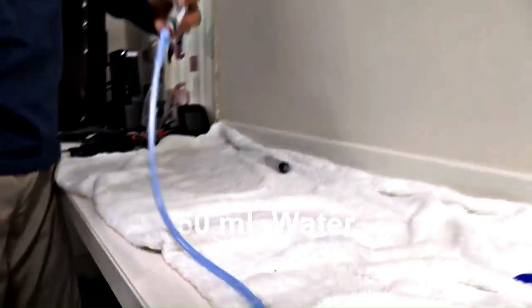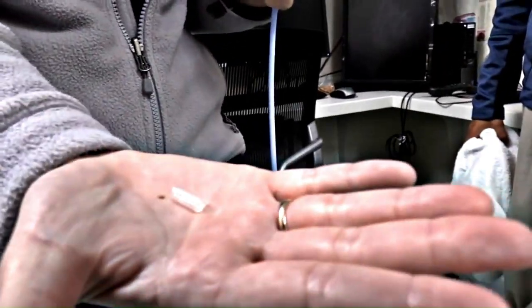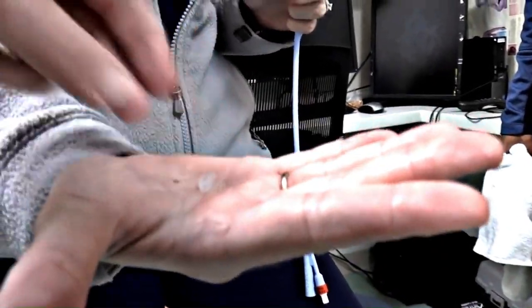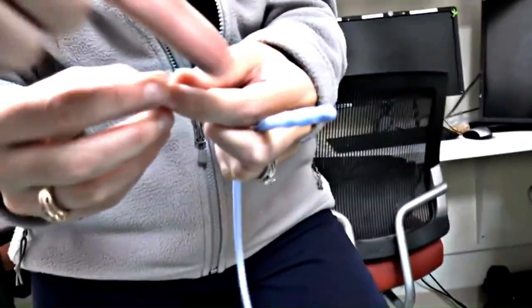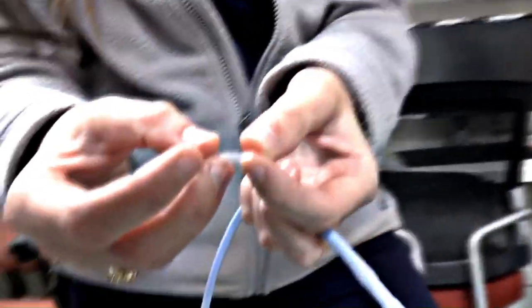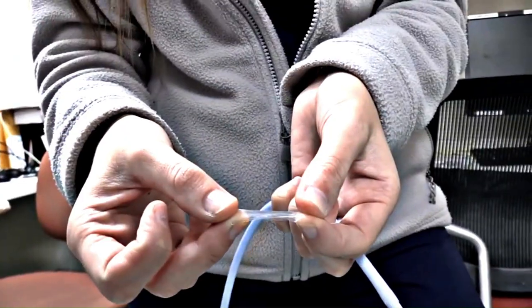I want to see if there are fragments of any kind that came off here. This was the balloon part, and that would be a fragment that came off — that's actually going to be a fragment that would be left in the bladder.